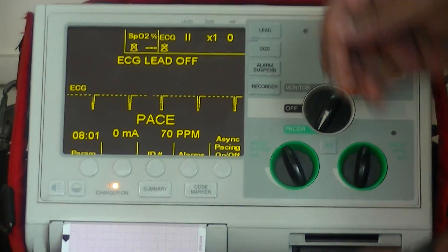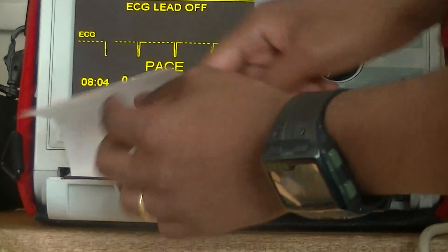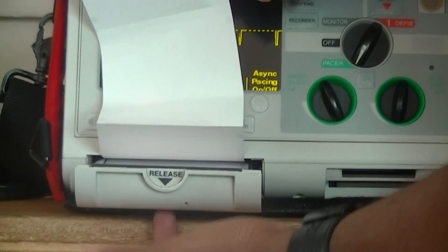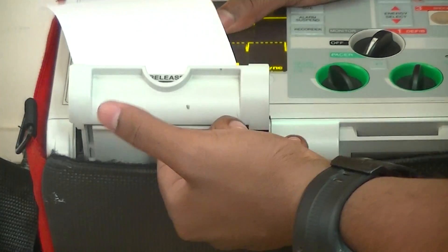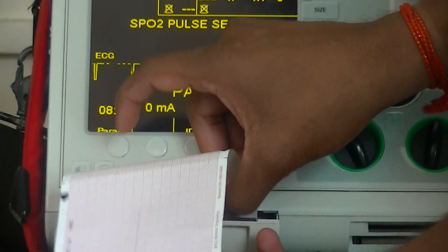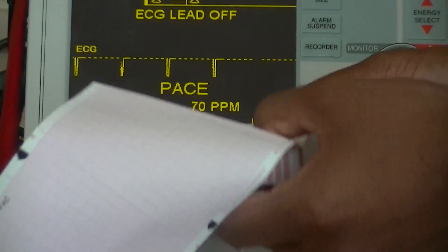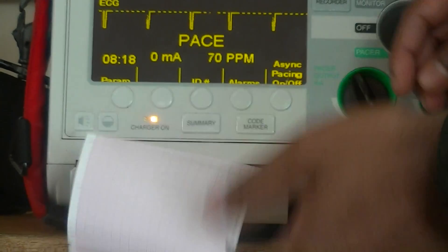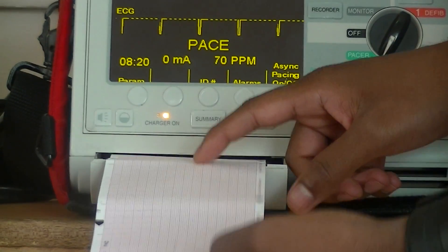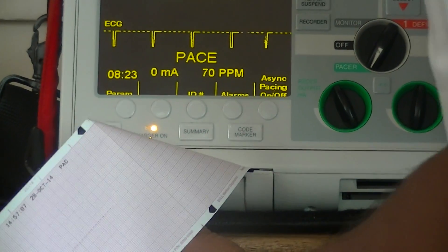This is voice-prompted. When you want to change the ECG paper, at the bottom of the monitor you can see a hole where you can push this out to remove the paper. When you want to insert a new one, go to insert here — make sure you have a little bit of paper hanging out and push this until you hear a click sound.